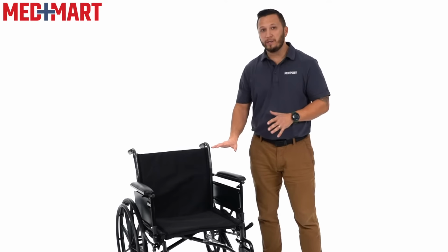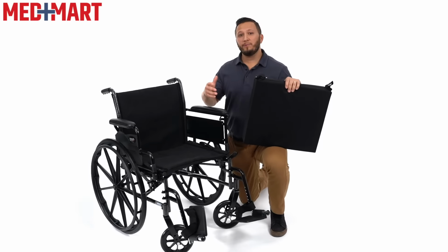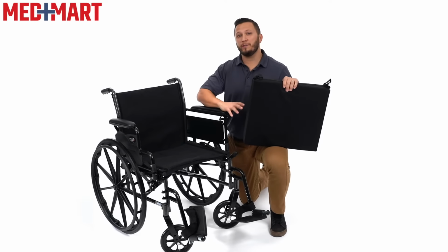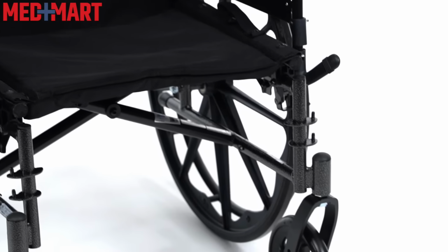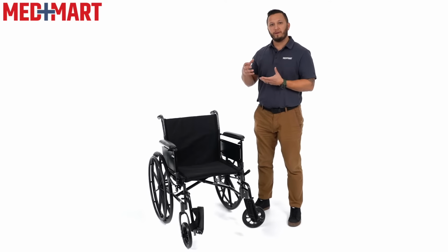First, you can actually purchase a cushion that will bring the seat height up a little bit higher, and the cushions can come in different sizes. I highly recommend a seat cushion for the manual wheelchair because if you're spending multiple hours in a day, the wheelchair cushion is going to be more supportive than the basic seat upholstery. You can also modify the front casters of the wheelchair by bringing them up onto the fork of the caster.